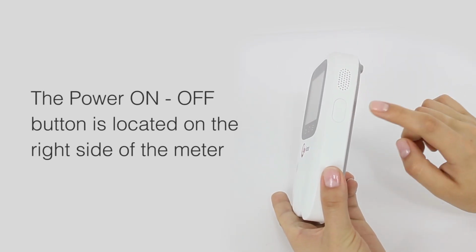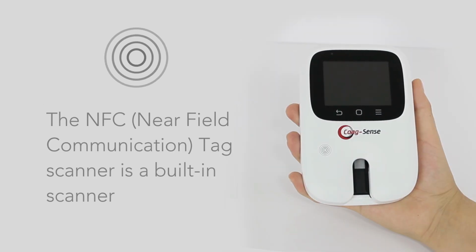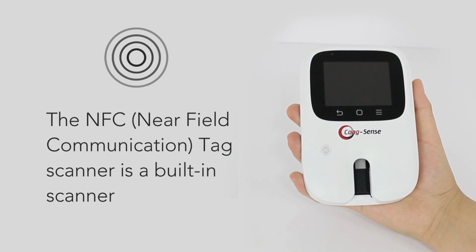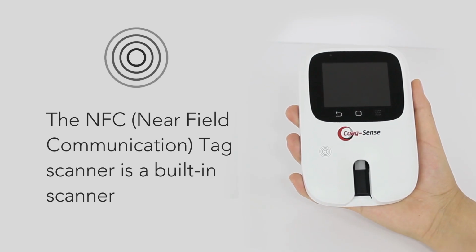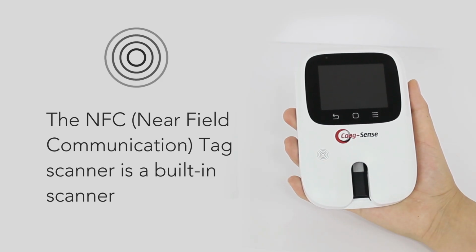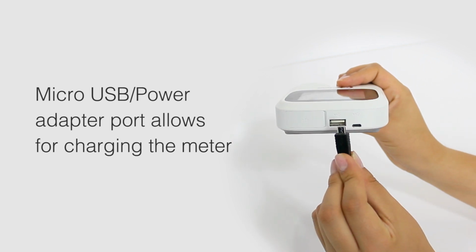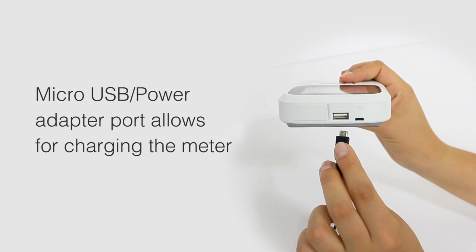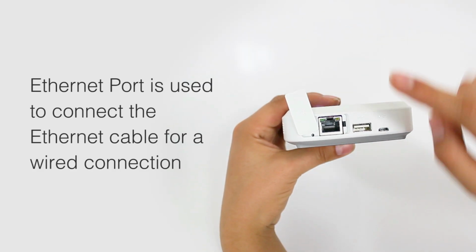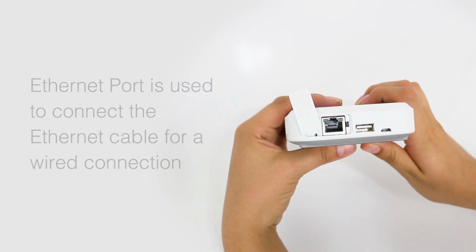The power on-off button is located on the right side of the meter. The NFC Near-Field Communication Tag Scanner is a built-in scanner that is used to scan the NFC card containing the strip, control, and test strip data. Micro USB power adapter port is a micro USB port for the power adapter. Ethernet port is used to connect the Ethernet cable for a wired connection. This port is provided with a port cover.